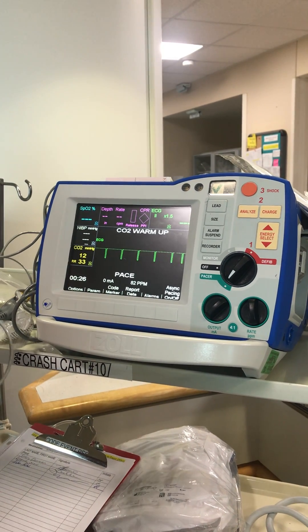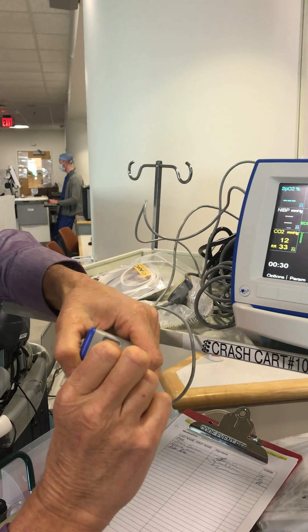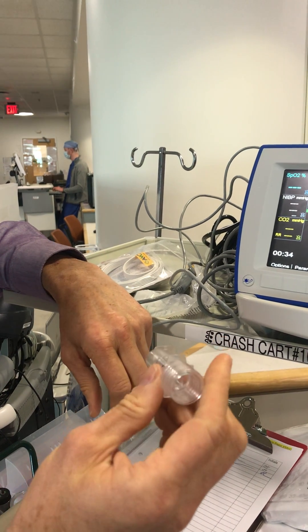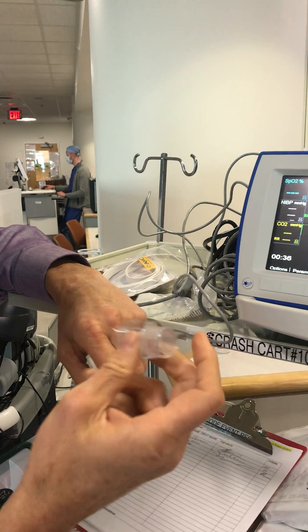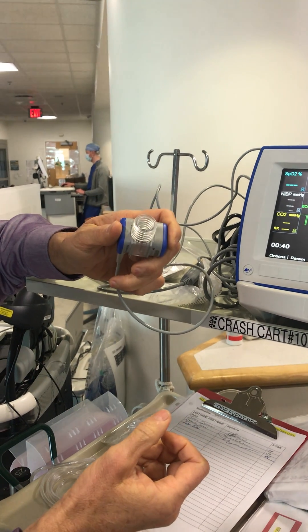If you've got a lot of secretions or pulmonary edema, you can pop this thing out and just reconnect the breathing tube system without it, walk over to a sink, wash this thing out, and then reconnect it, and you're back in business again. You should do that.